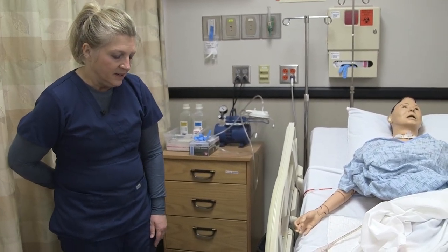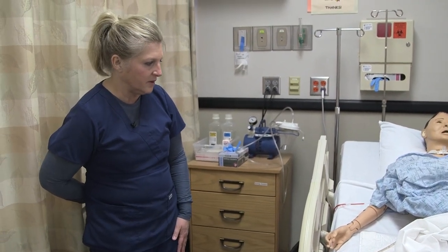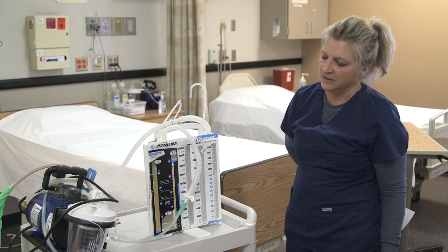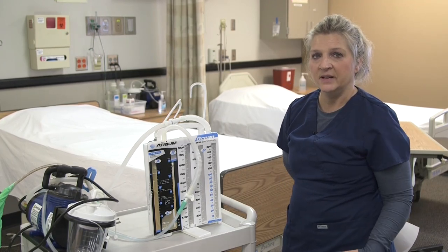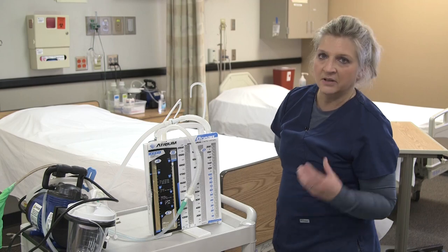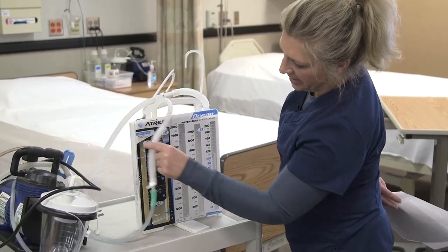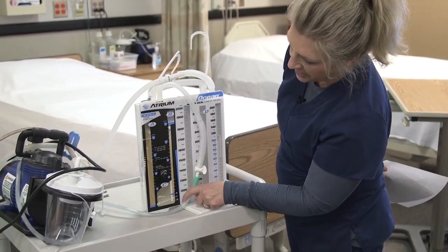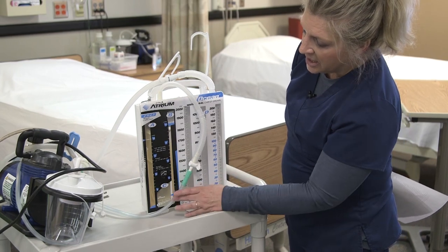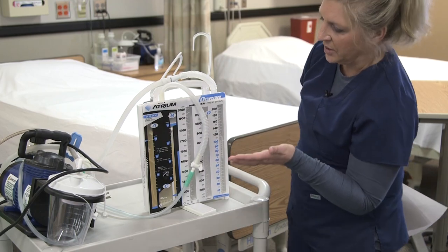If any complications occur with the patient's respiratory status, make sure you notify the provider. This is a water seal chamber chest tube drainage system. It prevents any air or fluid from getting back into the patient using a one-way valve and a water seal. With a water seal chamber, whether it's hooked to suction or not, you want to make sure the water seal chamber has the correct amount of sterile water added — typically around the 2-mark, or whatever the manufacturer prescribes.